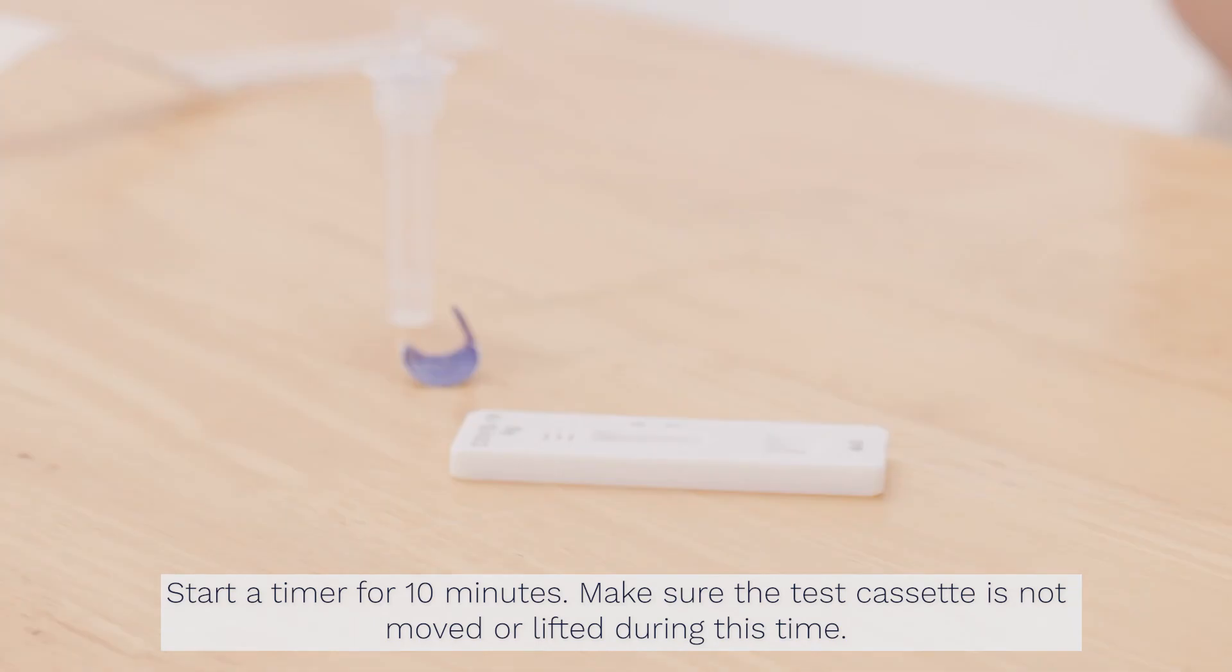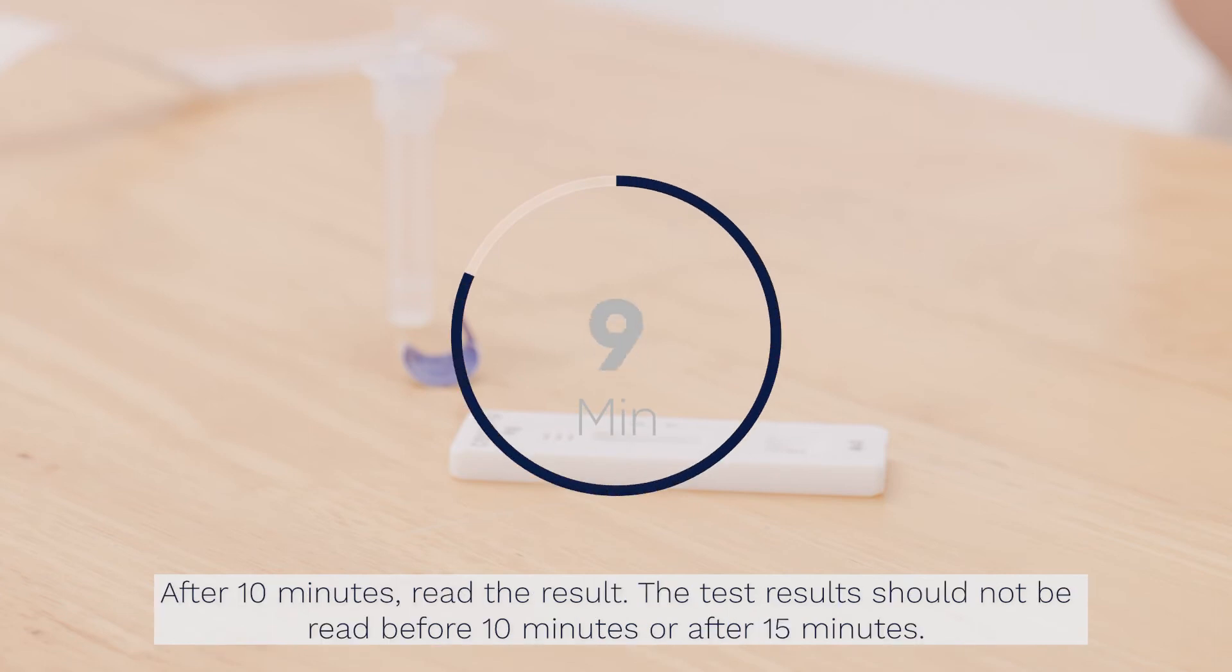Start a timer for 10 minutes. Make sure the test cassette is not moved or lifted during this time. After 10 minutes, read the result. The test result should not be read before 10 minutes or after 15 minutes.